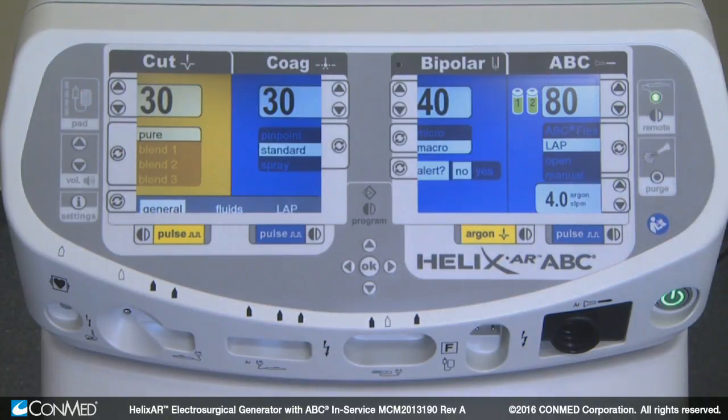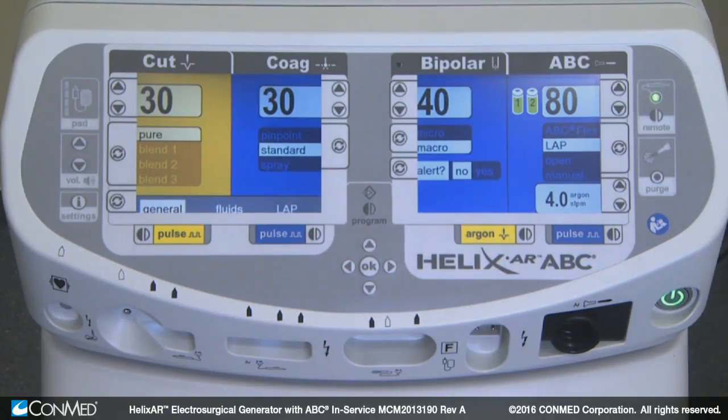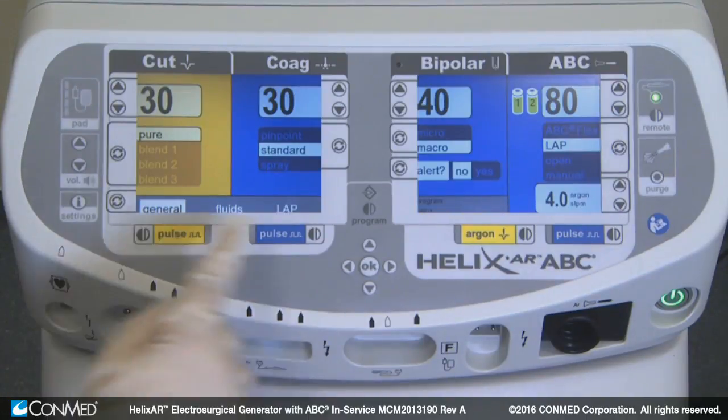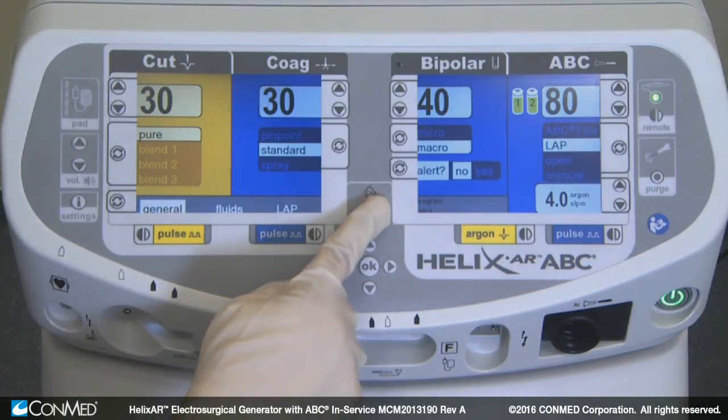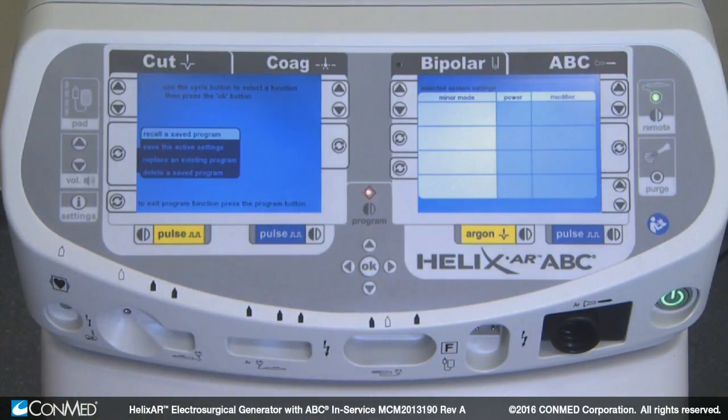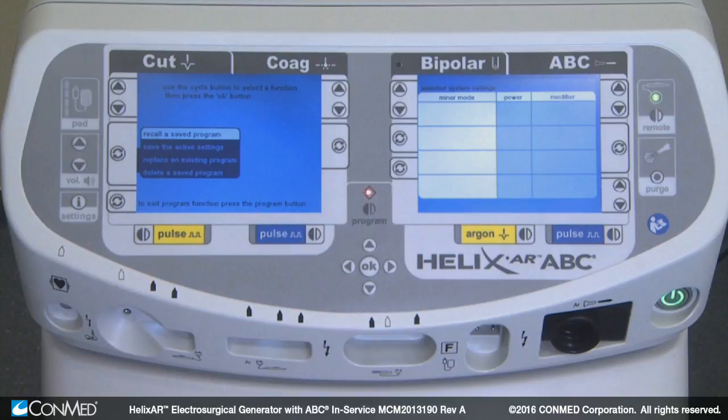Now let's review the program selection key. This enters the program mode, illuminating the program symbol when doing so.